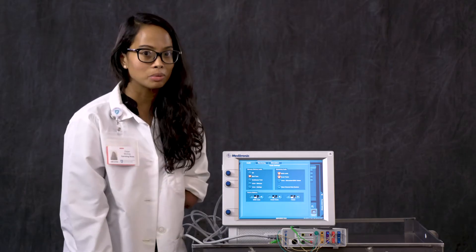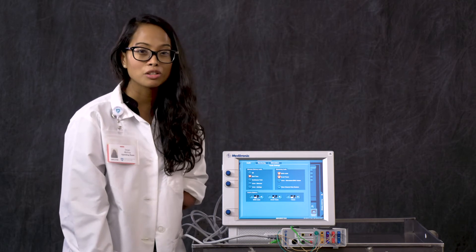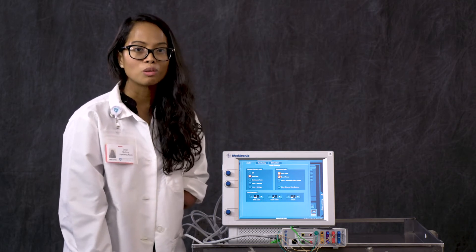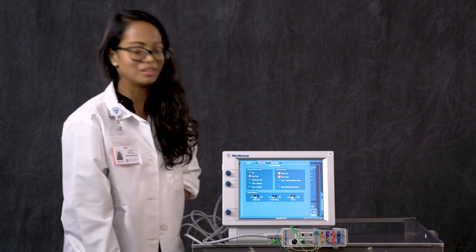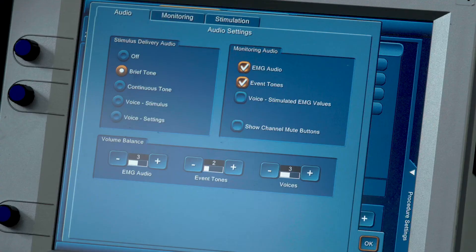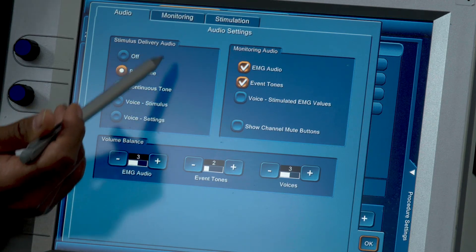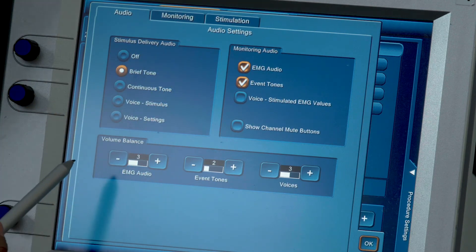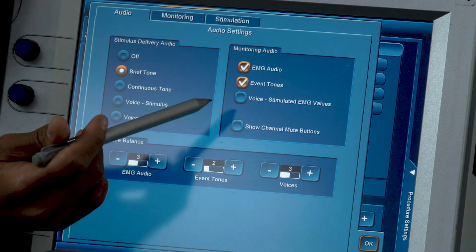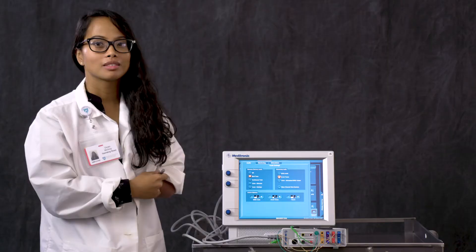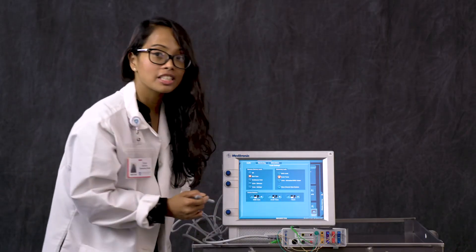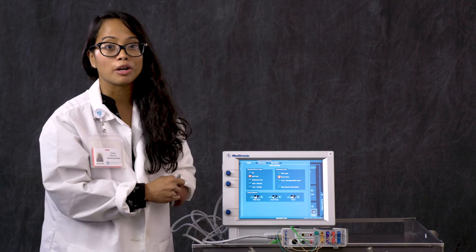The whole reason why this is terribly important is because you want to make sure when you are in surgery that you are monitoring and getting the right information. These are the settings that Inspire and we here at Mass Eye and Ear use to make this possible. We have our stimulus delivery audio, it's a brief tone. We have our monitoring audio. I'm going to take this one off. We're just going to have event tones.